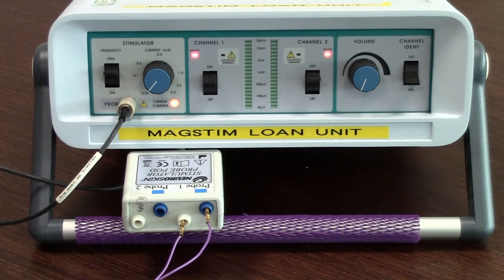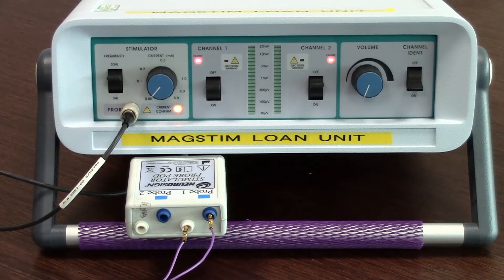Once the short has been made between the blue and the white on probe 1, the current confirm light will now activate. This indicates that your stimulating pod is functioning correctly.